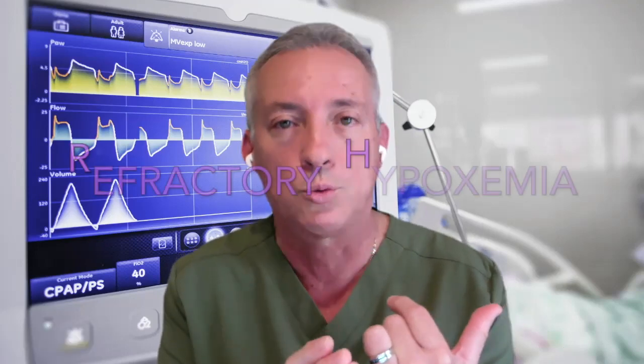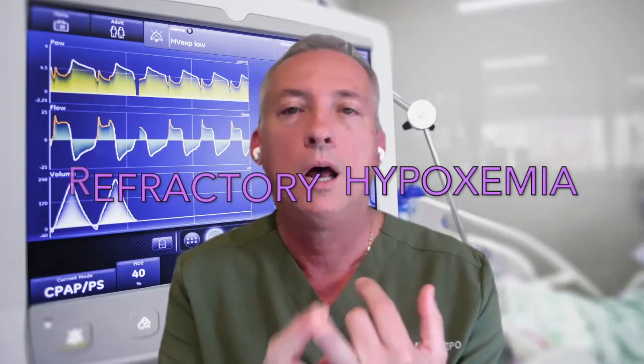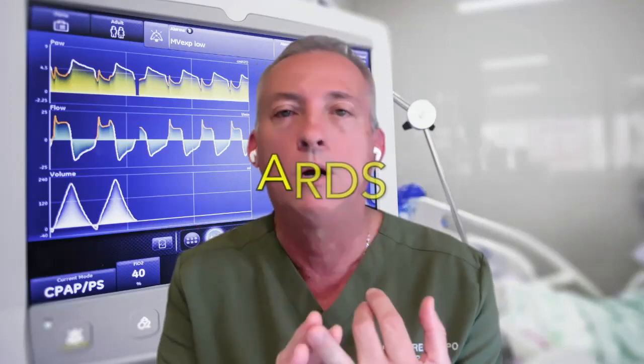Depending on where you work, you may be invited to set up bi-level or APRV. So a few key aspects: this is a mode that you are not going to see that often. You may be surprised by working maybe in a PICU or even in an NICU, because there's now more abundant literature that speaks of the use of APRV in the neonatal population. So a few things that you have to keep in mind before you arrive at the bedside. One, this is used typically for very stiff, very restricted disorders that are associated with very severe hypoxemia. So ARDS patients, maybe RDS patients.